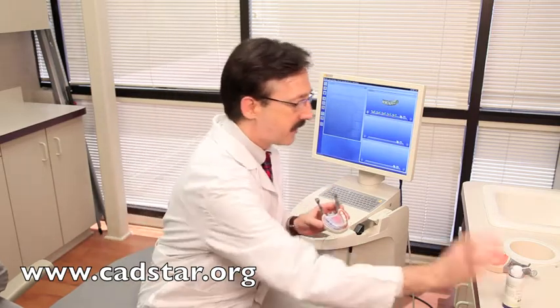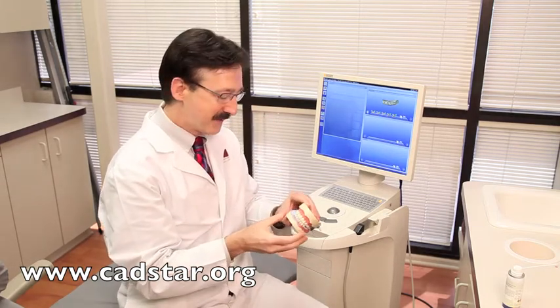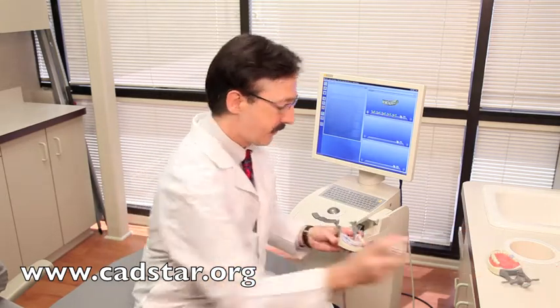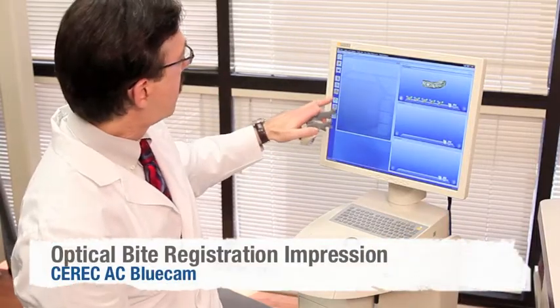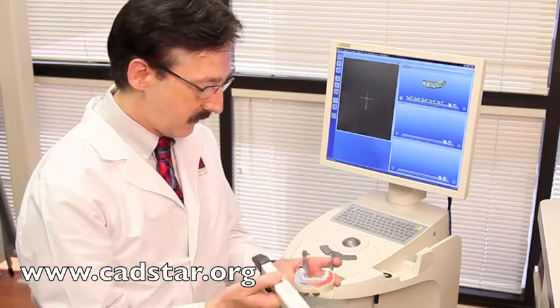So we're going to use the Typodon — it reminds me of those days in dental school. We use the silicone bite registration material and record that as our index for our bite registration. We'll place our cursor on the antagonist catalog and activate our camera. The same principle of capturing here applies as we did for the preparation optics.